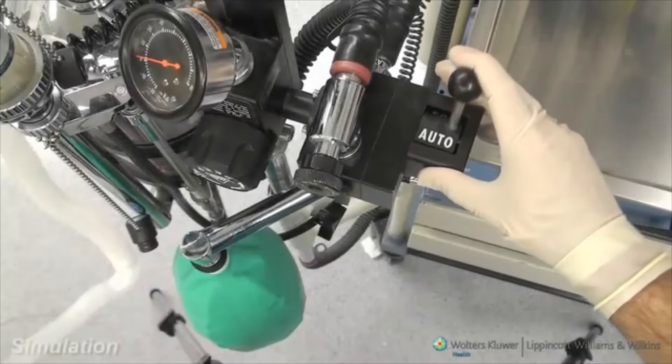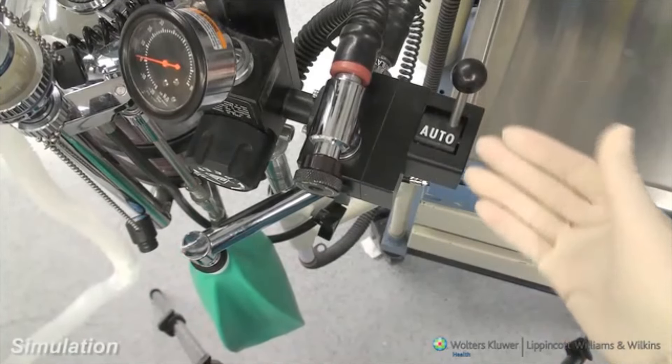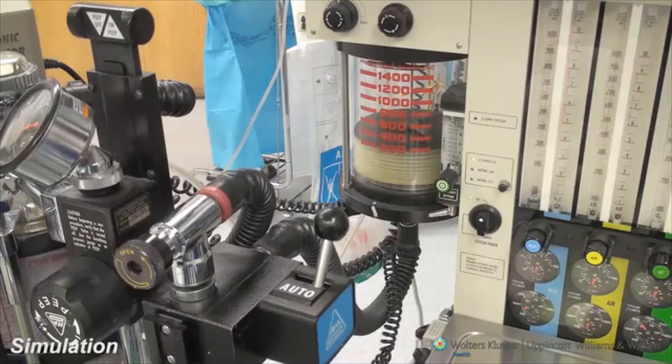If the lever that selects manual or mechanical ventilation is not appropriately adjusted to manual ventilation, the ventilator bellows will ascend and descend without the anesthesiologist having the ability to ventilate the patient using the reservoir bag.